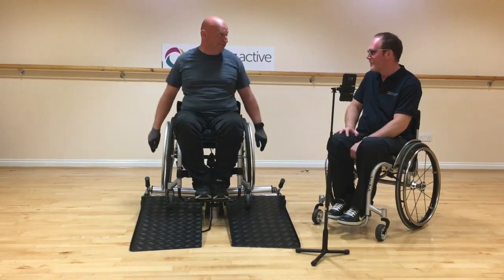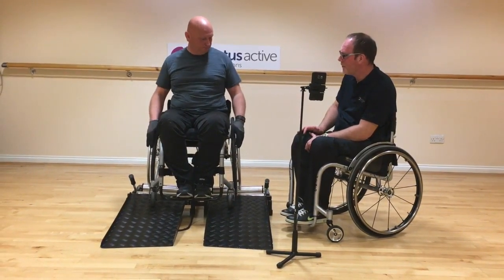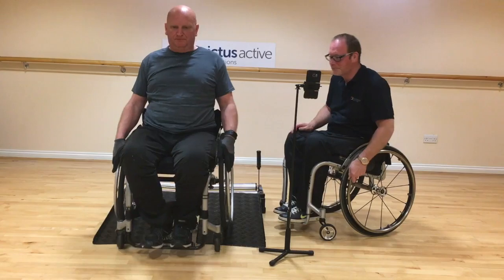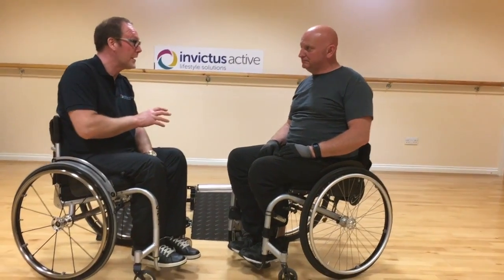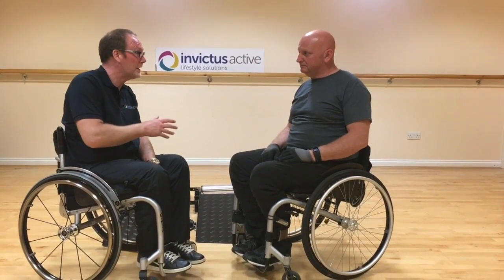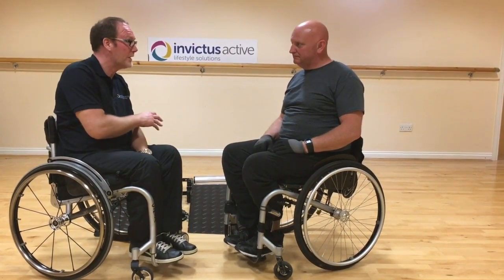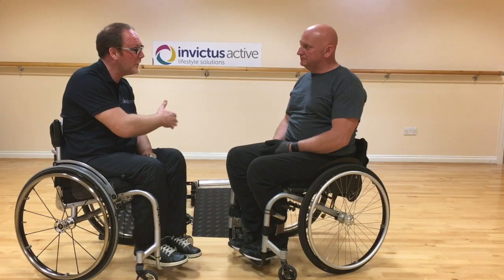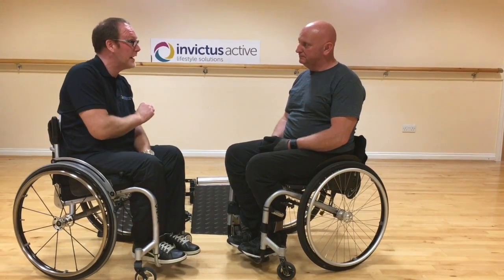I can feel that on my arms actually. Having completed your cool down and roll backwards, get off the trainer. For the first workout, that was excellent. We didn't cover everything — in a separate video, if you want more or less spin on your wheels, i.e. a little more or less resistance, we can do that by altering the camber, which you can see in a separate video. We also didn't cover wheelchair travel — some people using a trainer will travel left or right, and we cover in a separate video why that happens and how to prevent it.